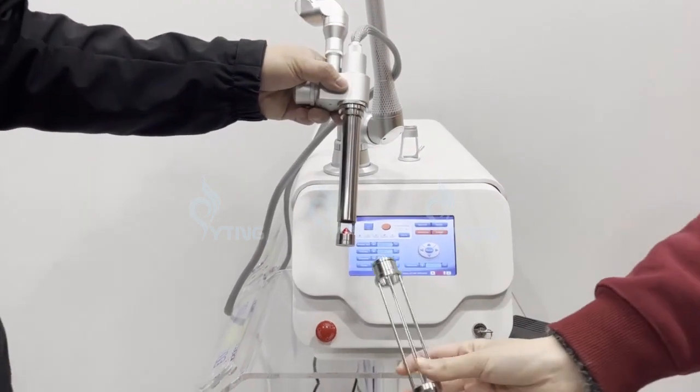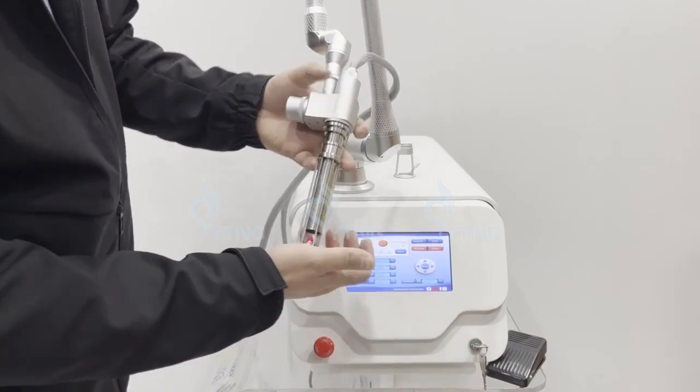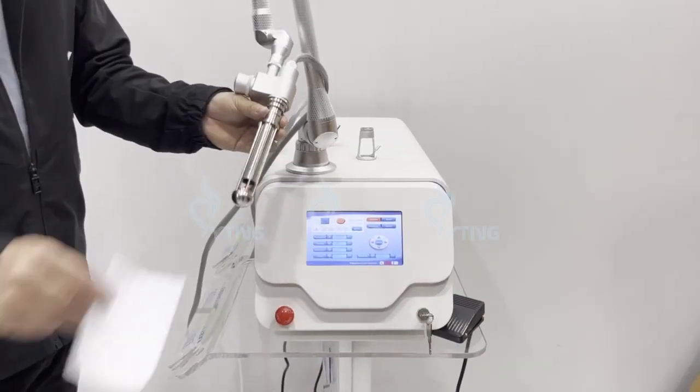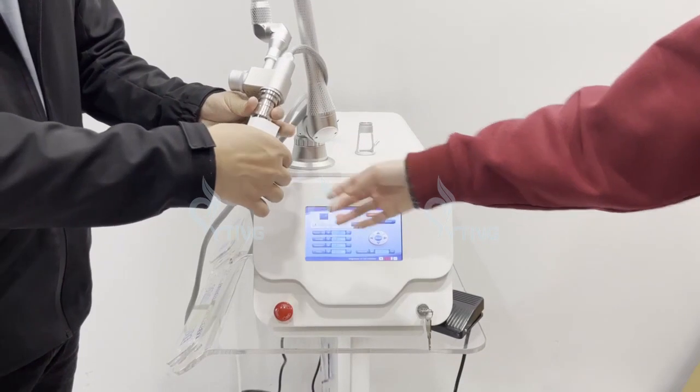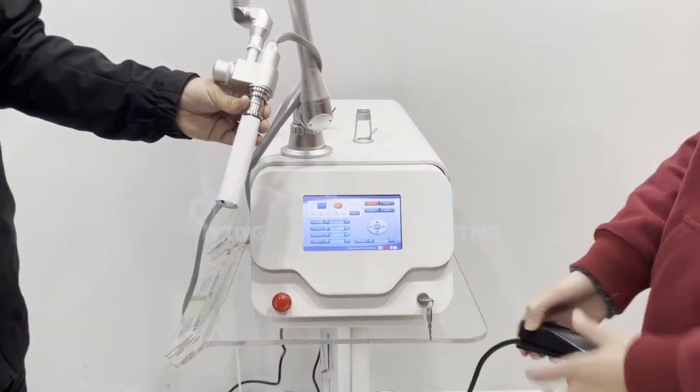Now we put this part here. Now we raise the head with a white paper to test the work.